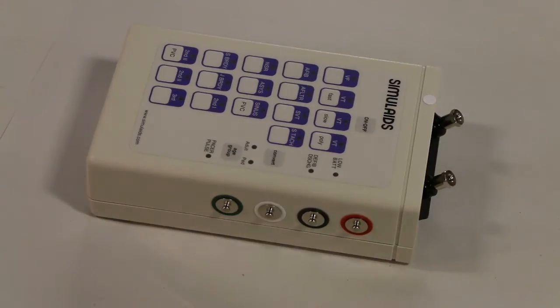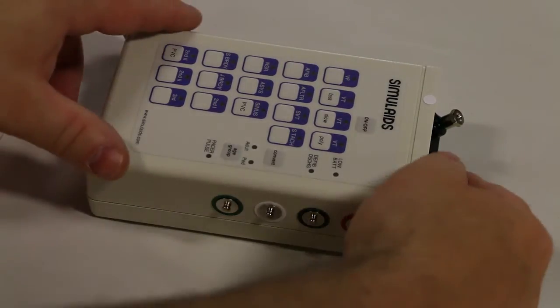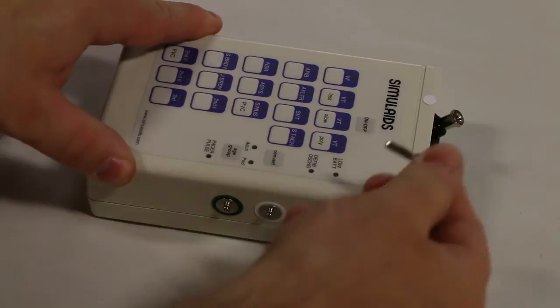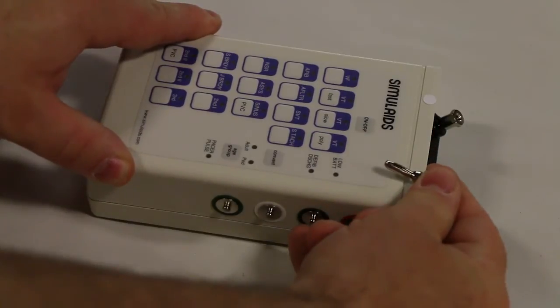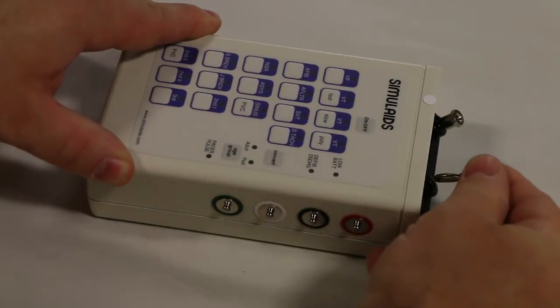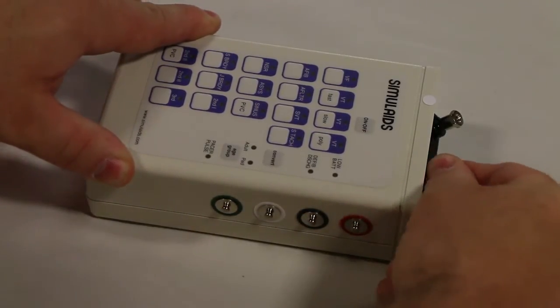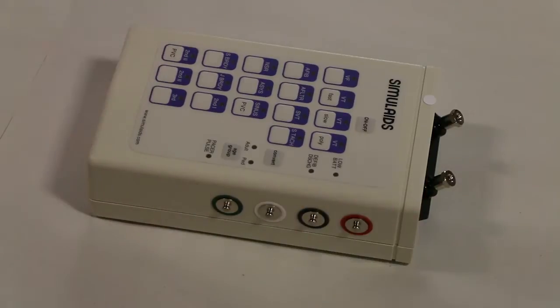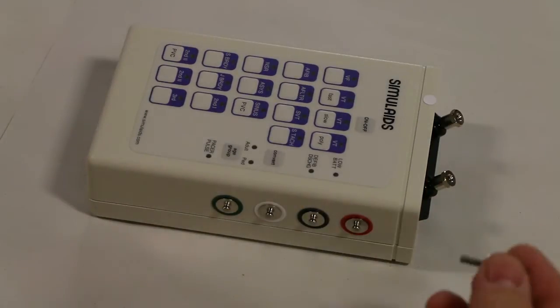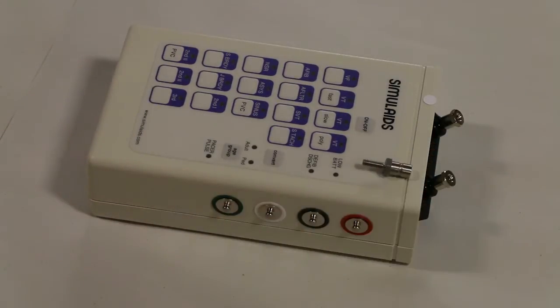The 102 Rhythm Generator can also be connected directly to the ECG. Here are the banana clips used to fit the posts for the training cables. Note these are different from the NASCO version and are not cross compatible.